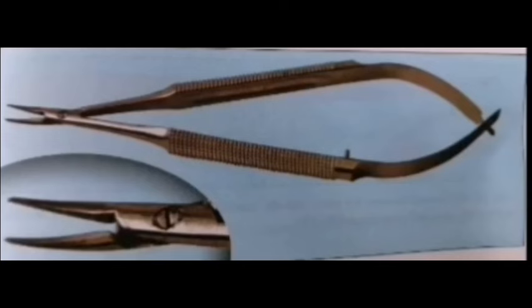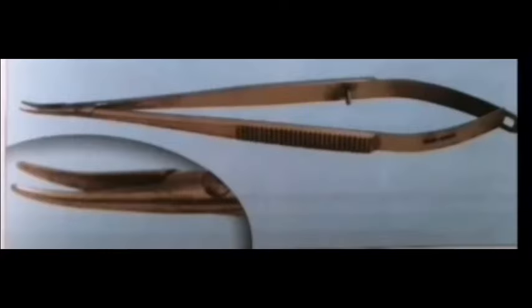The next among the needle holders is the Castroviejo needle holder. It is a medium-sized spring action needle holder and is generally used for extraocular surgery such as conjunctival suturing and squint surgery, and also for intraocular surgery.